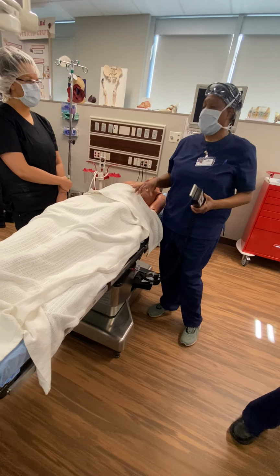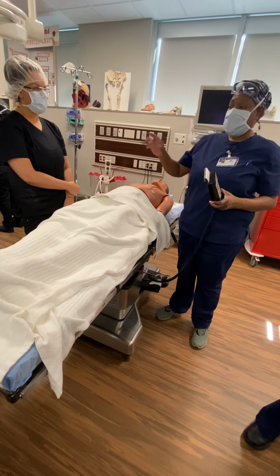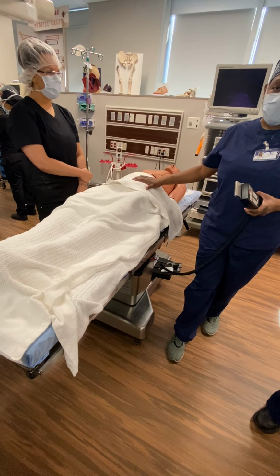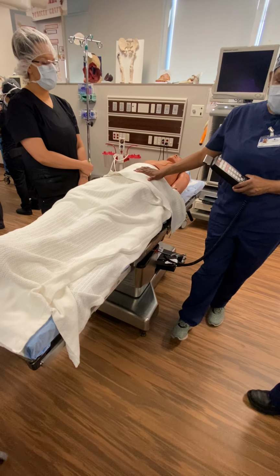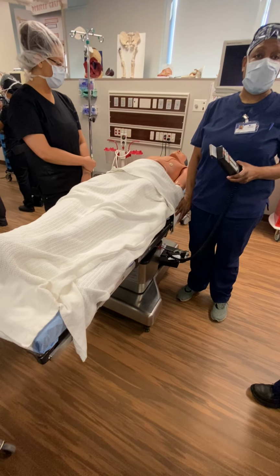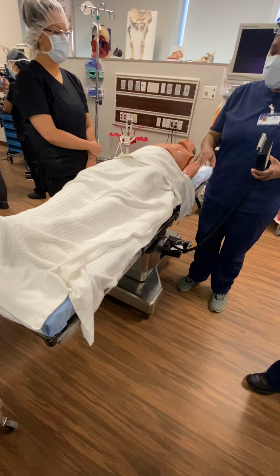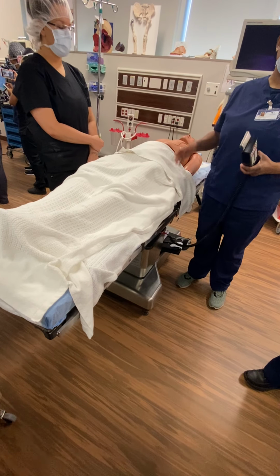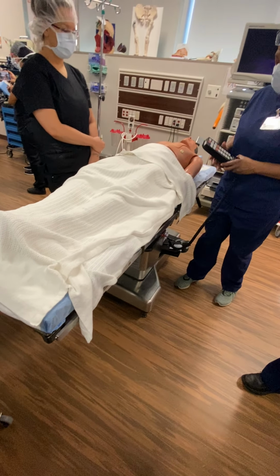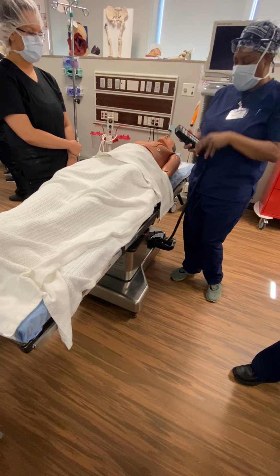If it moves, hurry up and lock it, because they're gonna lock their gurney before we move the patient, and you're gonna make sure this side is locked. You don't want to start moving the patient and this bed is not locked, or that bed, because the patient's gonna fall. And nobody wants that, okay? So just always check with your hip if it moves.